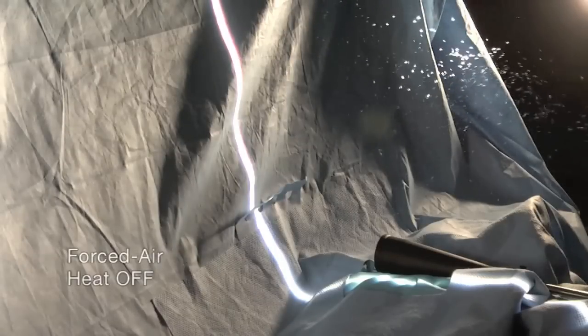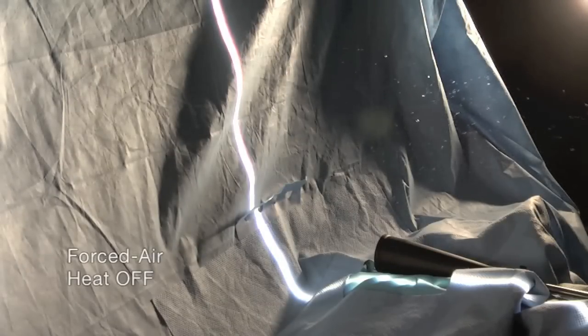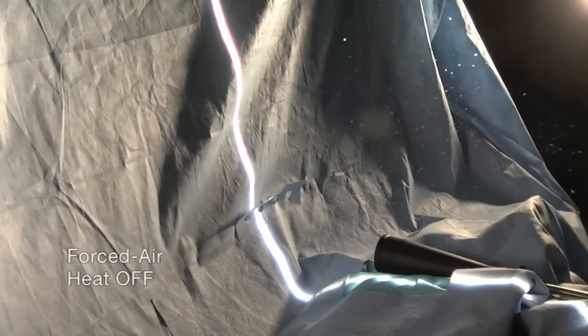With the forced air heater turned off, the neutral buoyancy bubbles released in the dead zone can be seen rising slightly and then are quickly cleared.